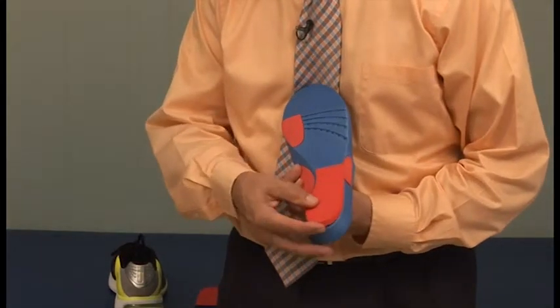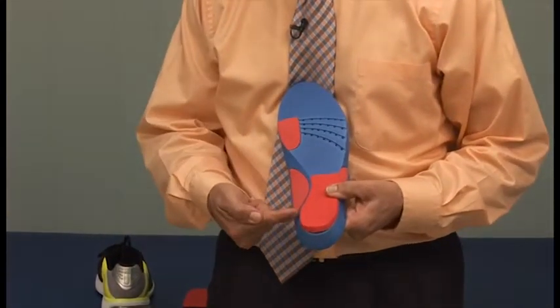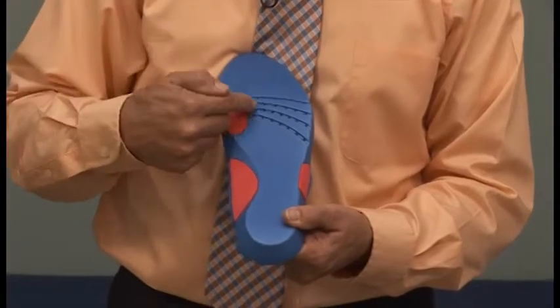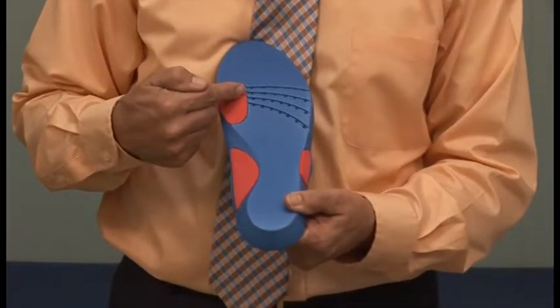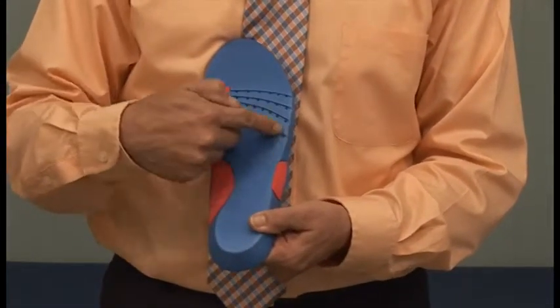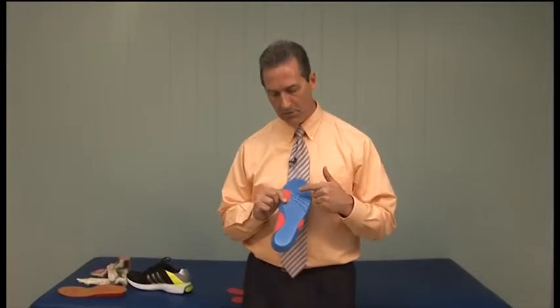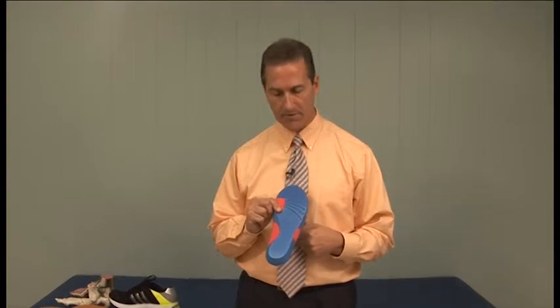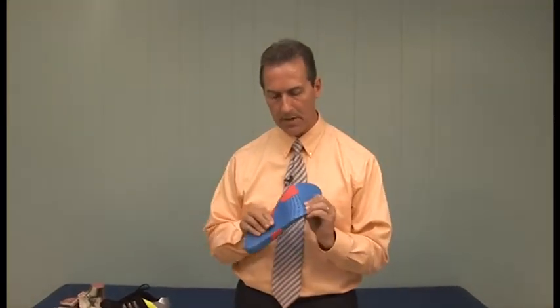This is placed on the rear foot section and can be trimmed with scissors so that it does not interfere with the arch profile of the device. In the frontal plane, we've balanced the device with a soft depression for the first metatarsal head, as well as a lateral forefoot post. This lateral post has been vented and creased to allow for more even heating of the device and to create a natural bend when the patient hits the push-off phase of gait.